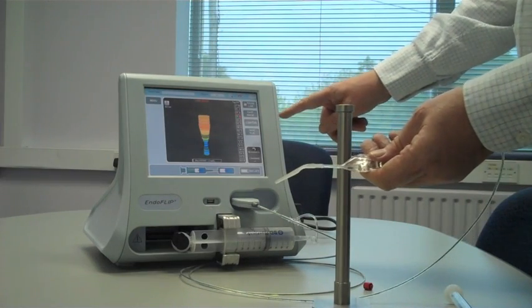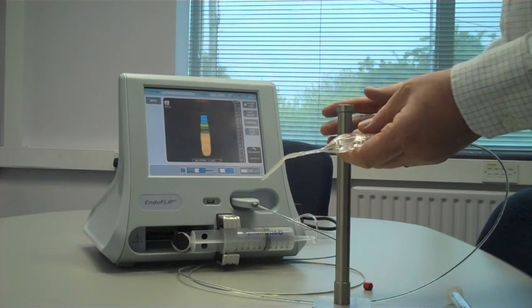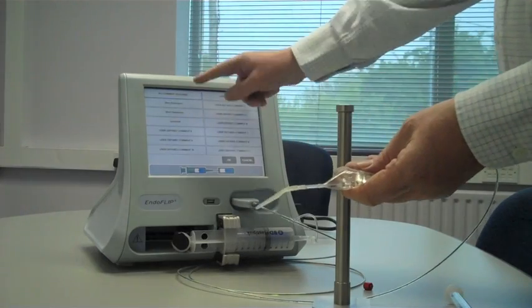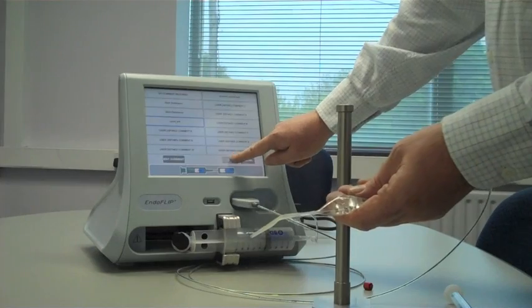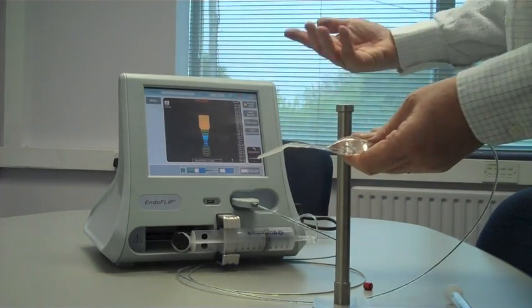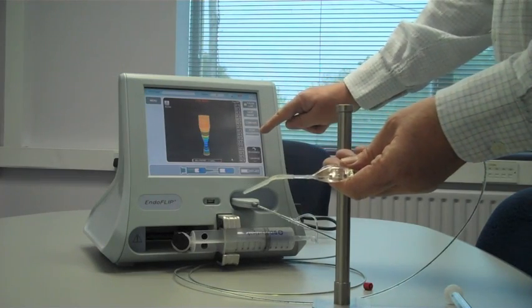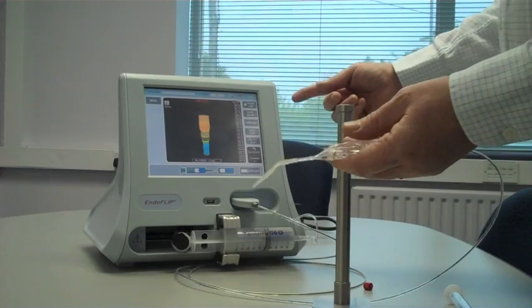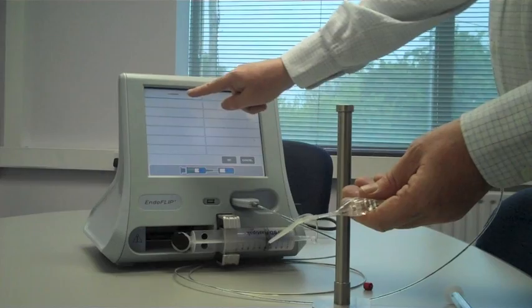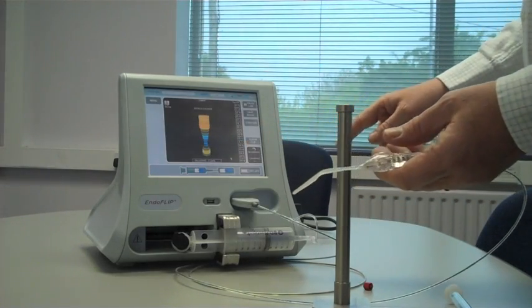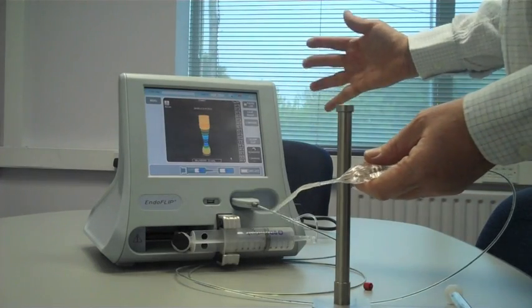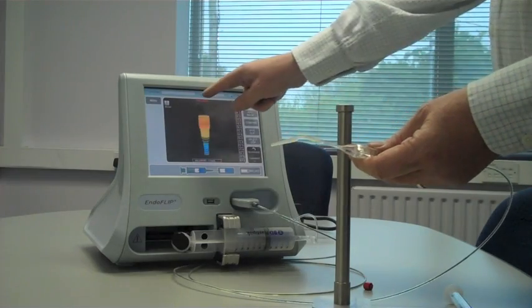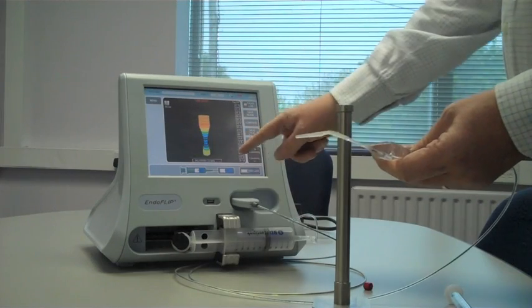I'm going to Clear Compare just to get back. You can, if you wish, save a clip. A clip is essentially like saving a video image rather than a snapshot. So by hitting Save Clip, again I choose a comment, let's go Comment, OK. And now it's recording in real time that image, or rather that clip. So I can hit Stop Recording. And then if I want to play back the clip, I can hit Select Clip. There's my comment, OK. And there's my image, or rather my clip being played back. I'm going to Clear Clip just to get back to my live image. So you'll notice it says Live Image, and down here you have the balloon pressure being displayed.